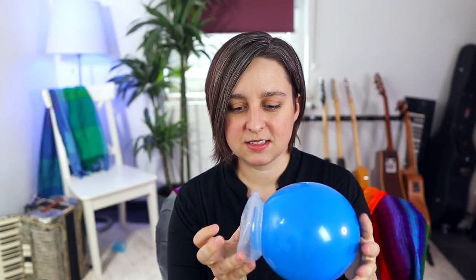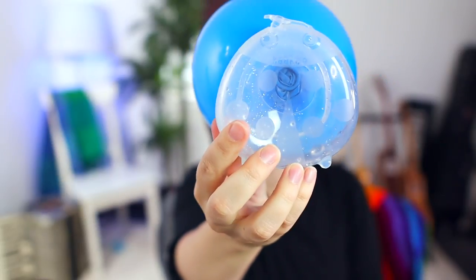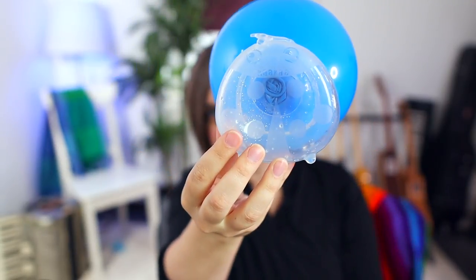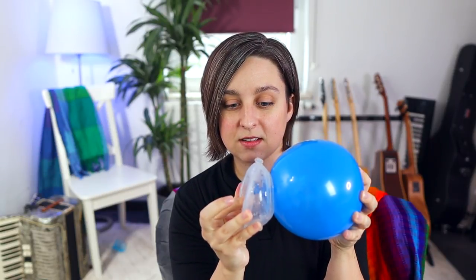The only thing I don't like about the suction is that the suction part goes right on the nipple — this balloon has a little bit longer nipple than you probably do, but you can even see on there, that is kind of what it felt like while wearing it. I had to put it really, really light so it didn't touch the nipple, barely enough to get it to stay on so my nipple wasn't touching the end. But it did draw out more milk than a milk catcher, not as much as a Haakaa. So if you wanted something in between, little ladybug.